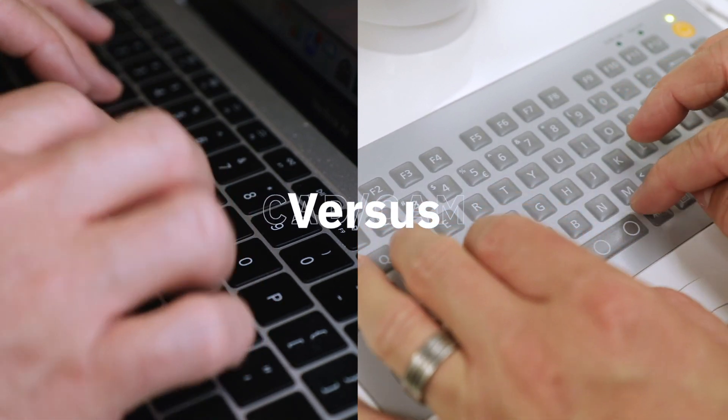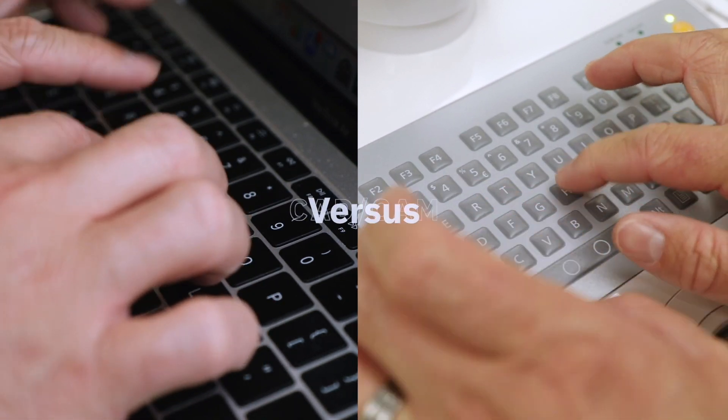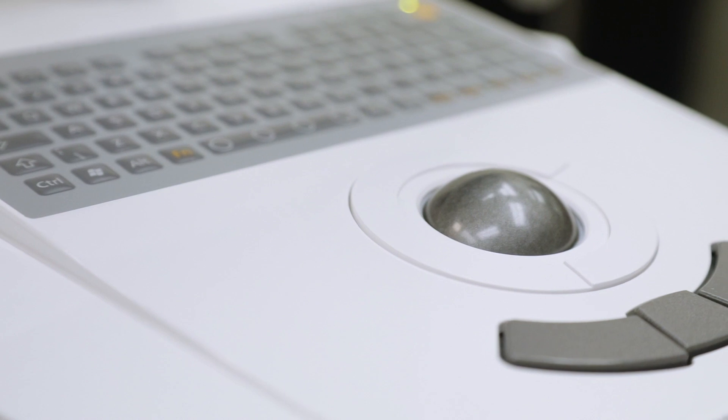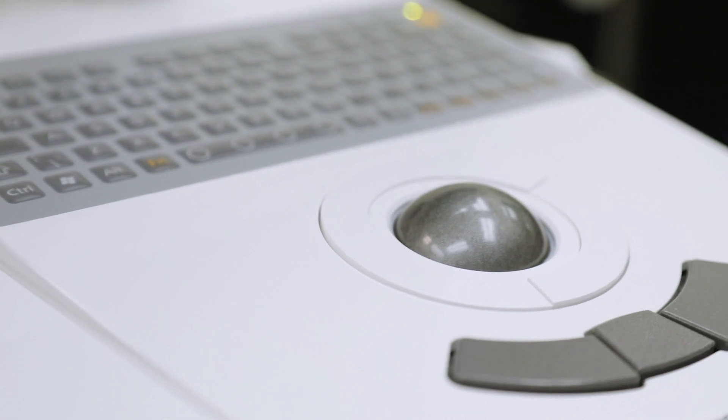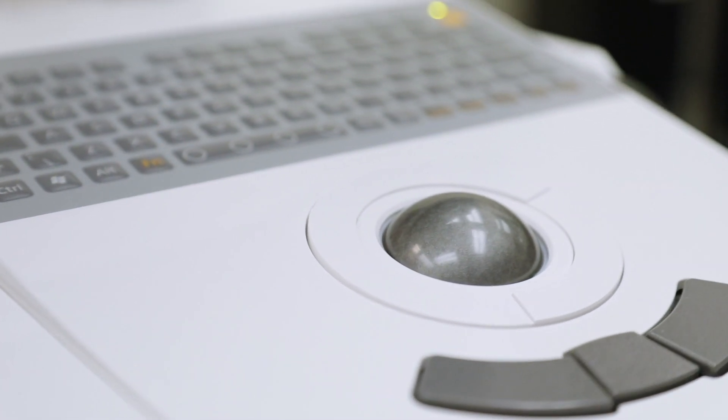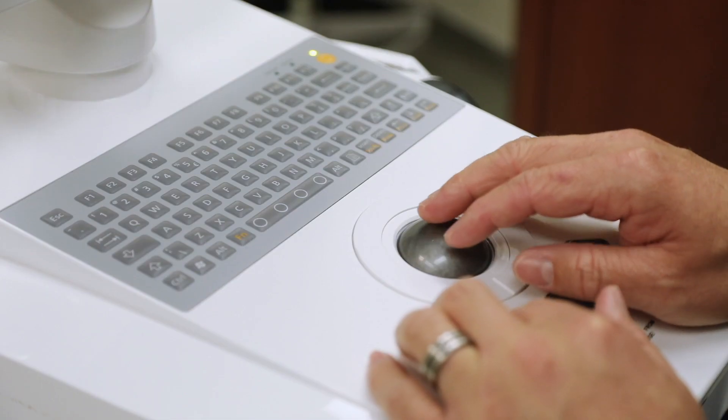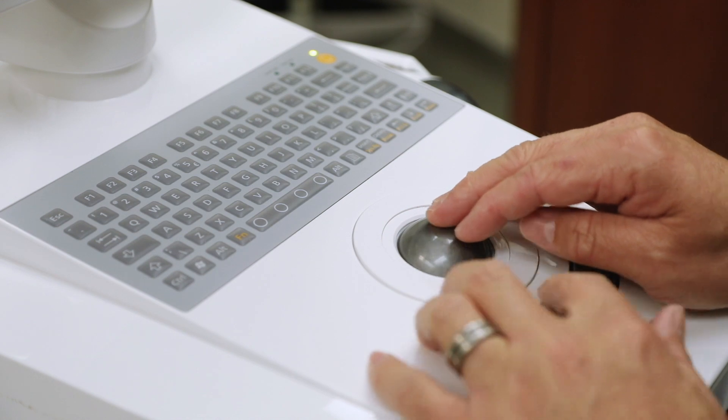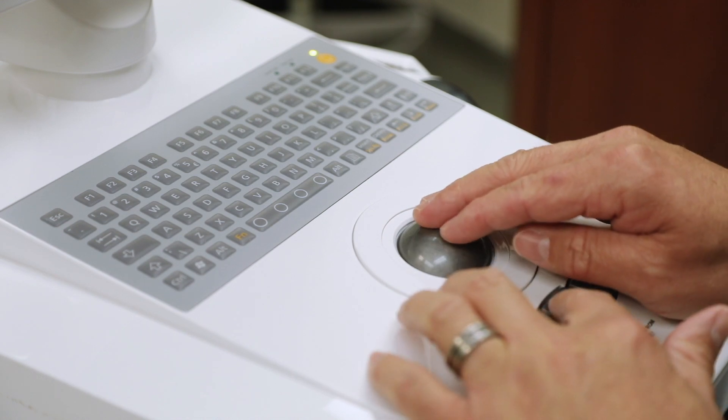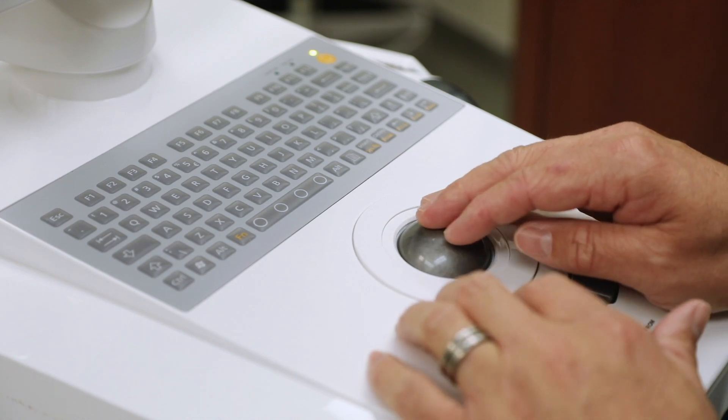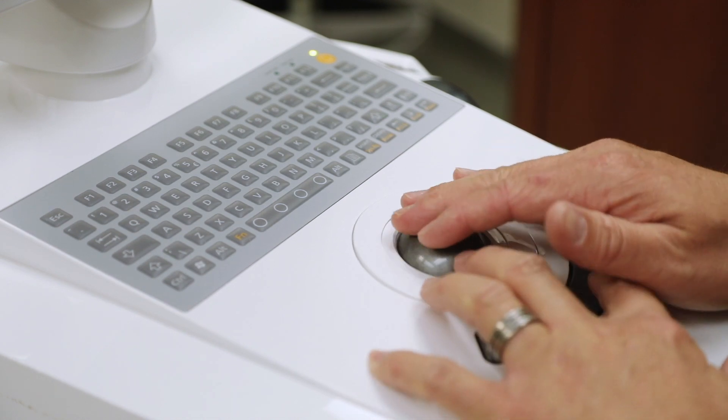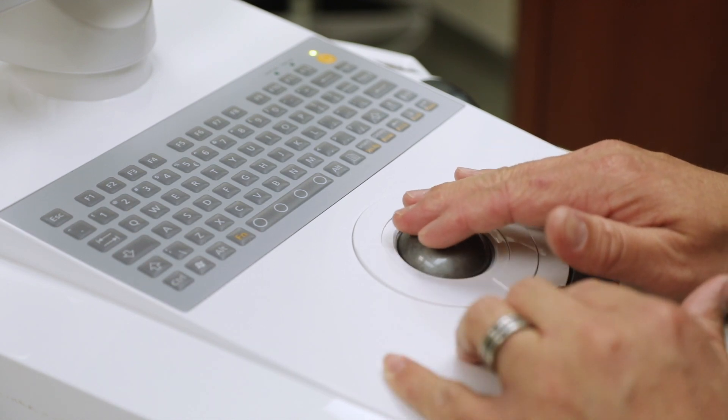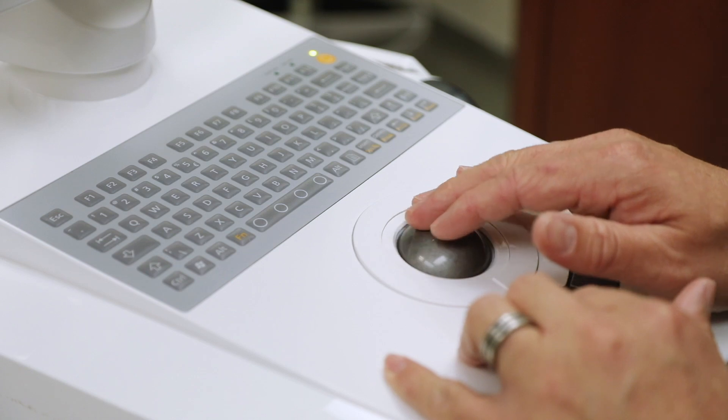The trackball and buttons below the trackball act as a standard mouse. Instead of moving a mouse around, you move the ball instead. When we get into the software, I will go over some of the little features you will want to know about the trackball and buttons when manipulating the digital models.